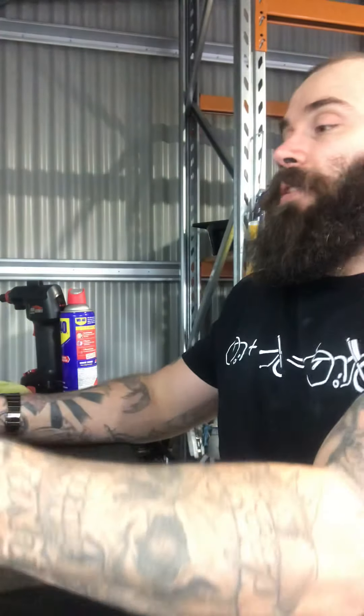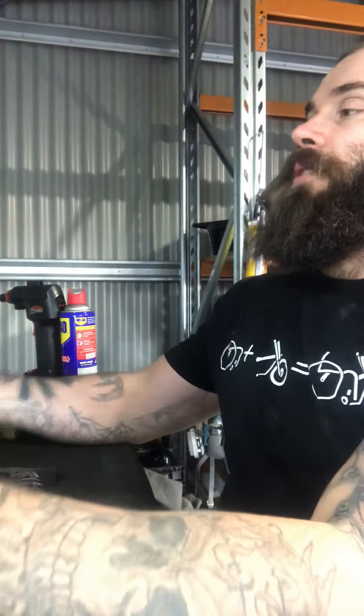What up guys, Jason here again — public service announcement. Got home early from work so I figured I'd do another little video just for some general wheelchair maintenance for you guys out there. Anyone who's curious about why your wheels will be wobbling on and off or sometimes not locking in, I will explain that for you right now.